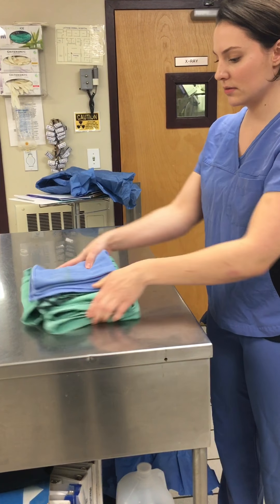Then place a towel that will be sterile, to have hands dried sterilely after they are washed. I'm going to put the indicator in the middle of the gown.